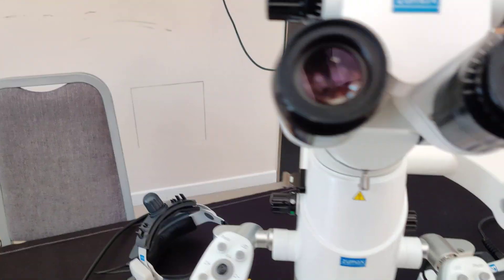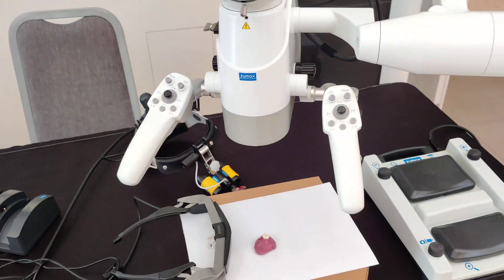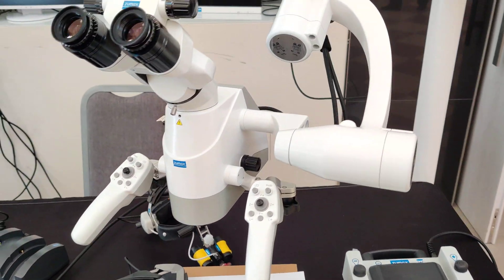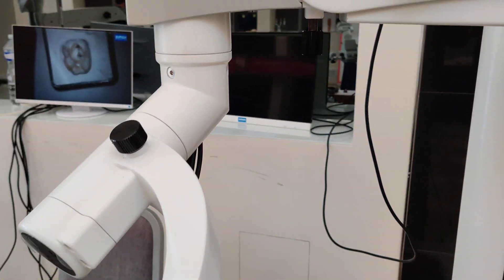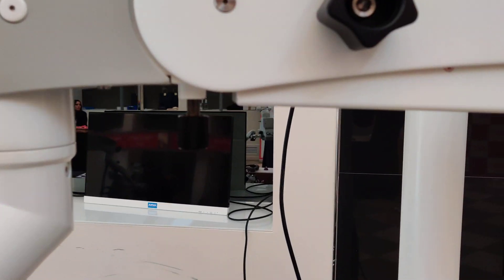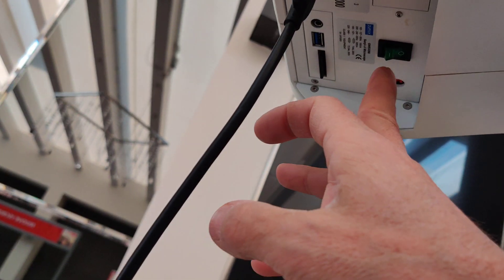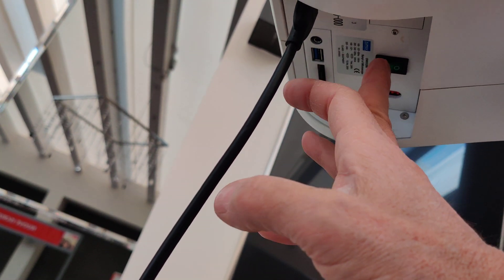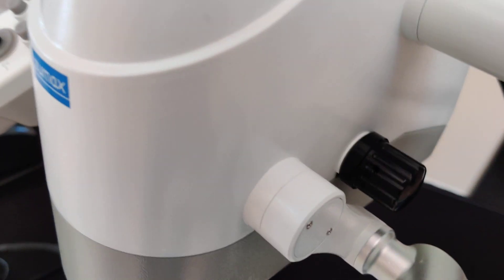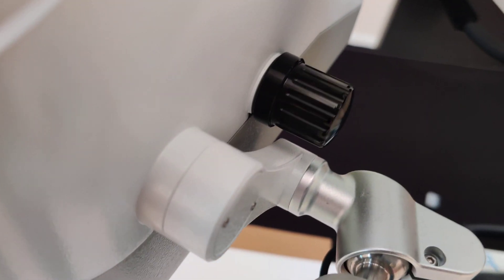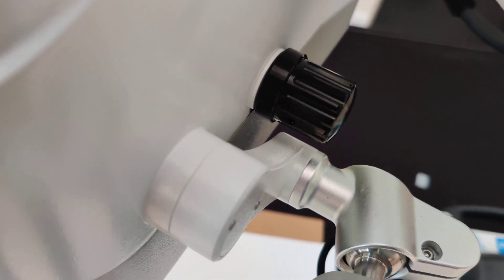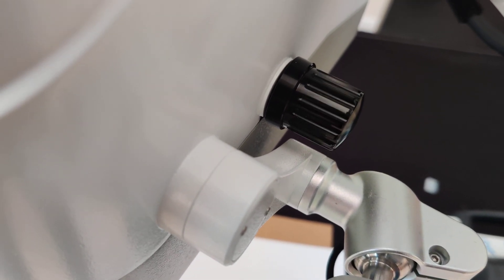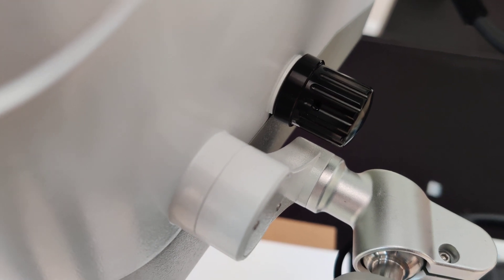Good morning everybody, let's try to make a small movie and see how the microscope 3200 works. So let's start from the beginning. We put the microscope on from here and we see that the microscope is making the check here. Don't touch the knob, it's just trying to check if it is working or not.